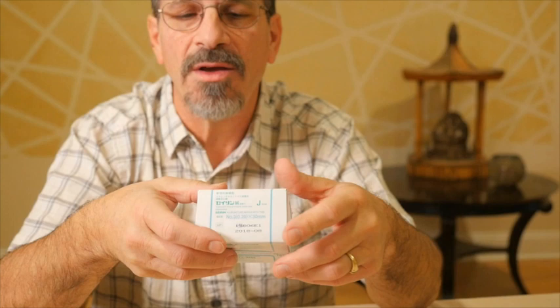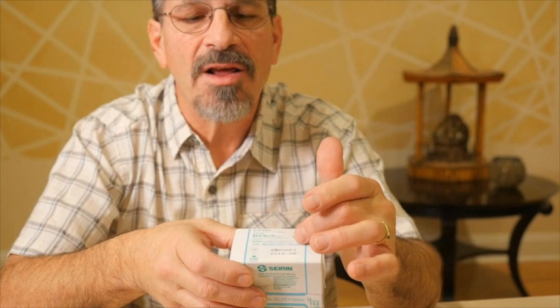These particular needles are a number 3 by 30 millimeters, and number 3 is 0.20 millimeters in thickness. We're going to keep two parameters in mind: the length of the acupuncture needle as well as the thickness of the body of the needle.